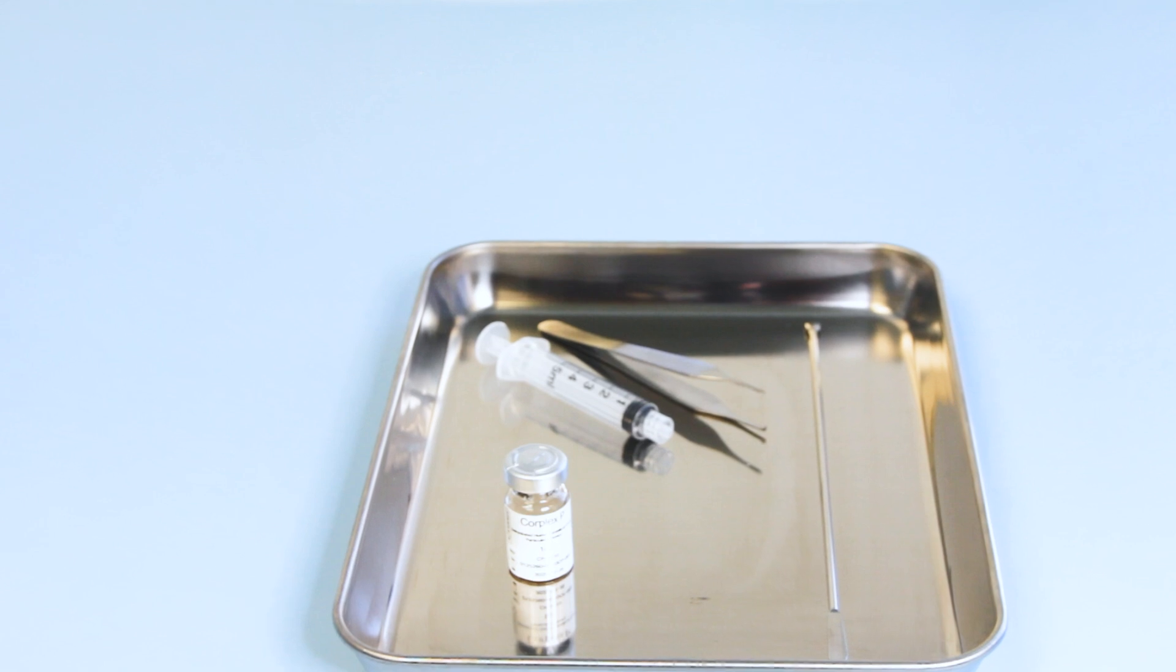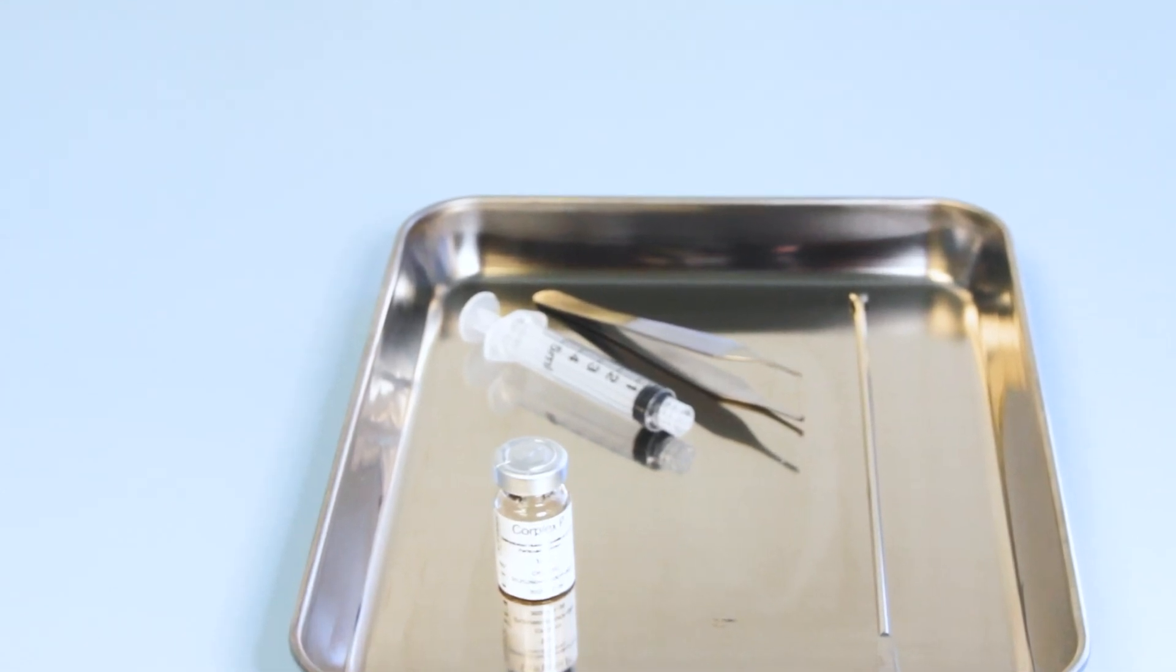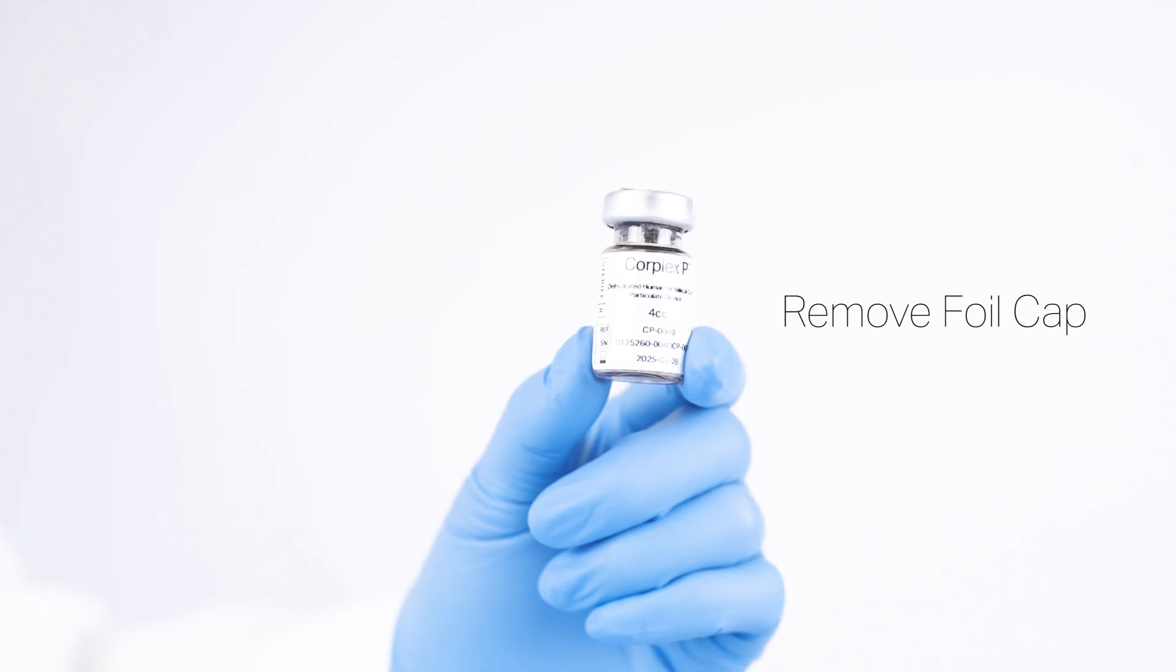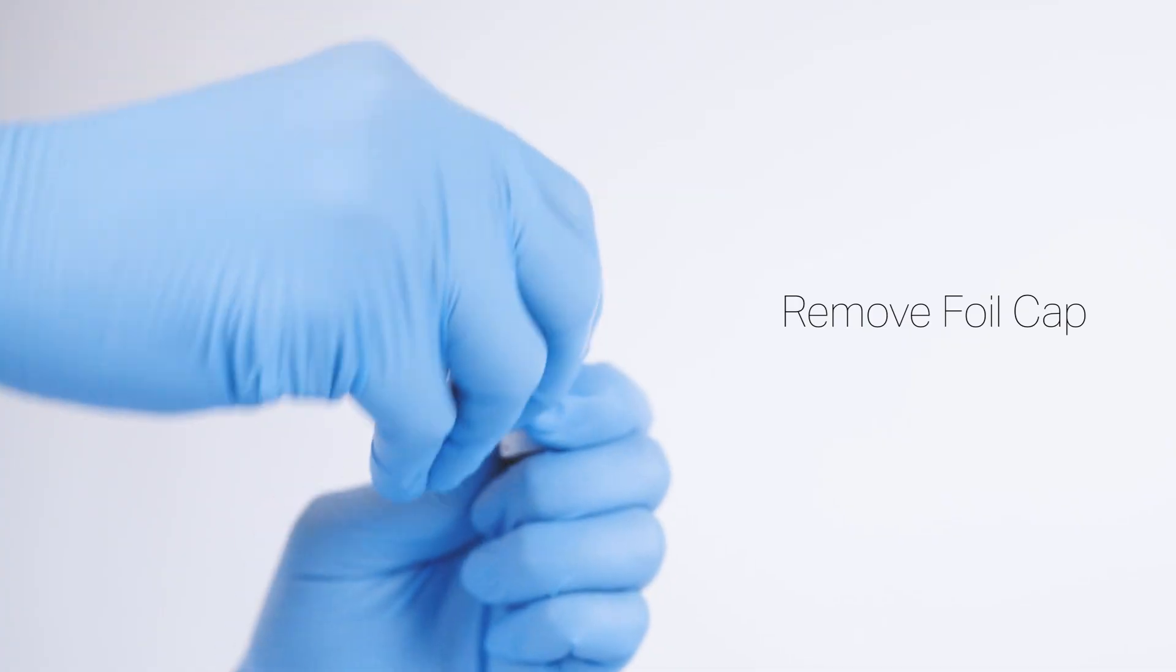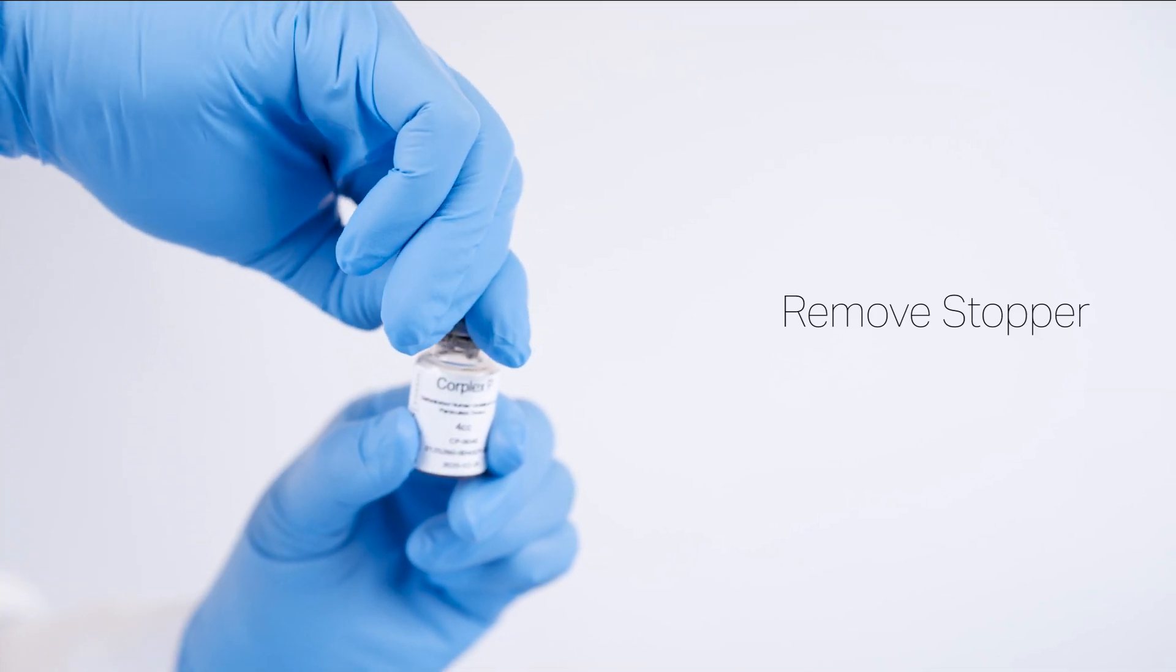Upon application, discard the vial and all unused material in accordance with biohazard protocols. Remove the foil cap from the vial. Remove the stopper.